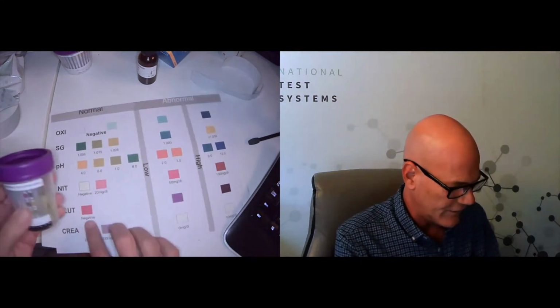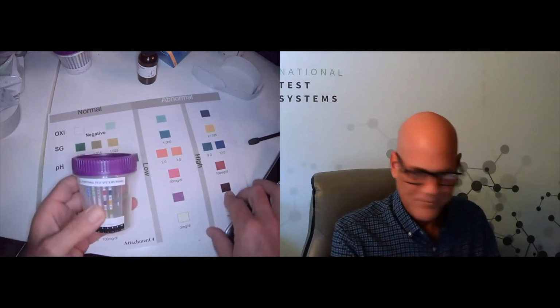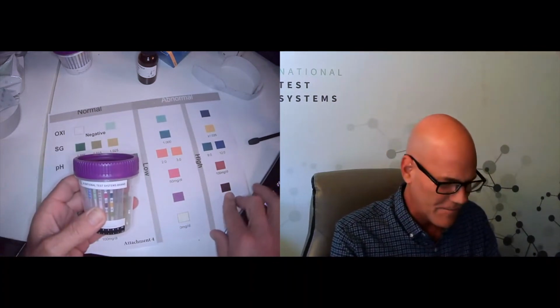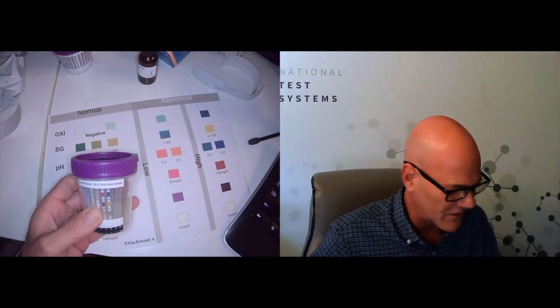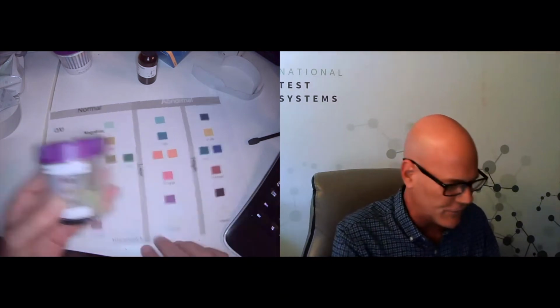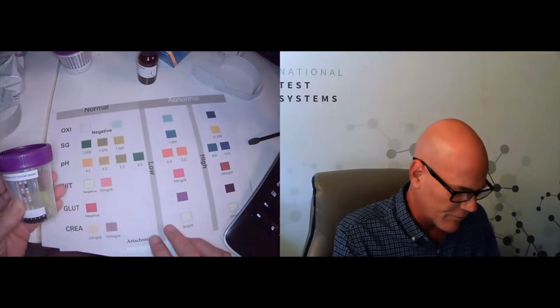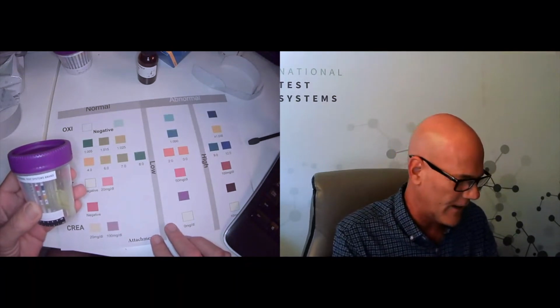Next one on the list is glutaraldehyde. Glutaraldehyde, we can see, goes from a little more red to a little more dark purple. And again, you'll have to take my printer in along with it with a grain of salt. On here, it looks like the glutaraldehyde is probably a little further up this way, but I'm going to just chalk that up to the print job. So according to the controls, that should be negative for the glutaraldehyde.